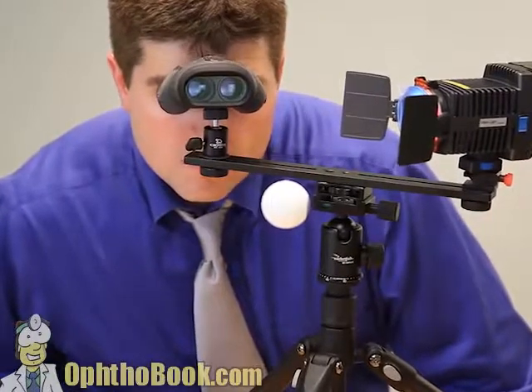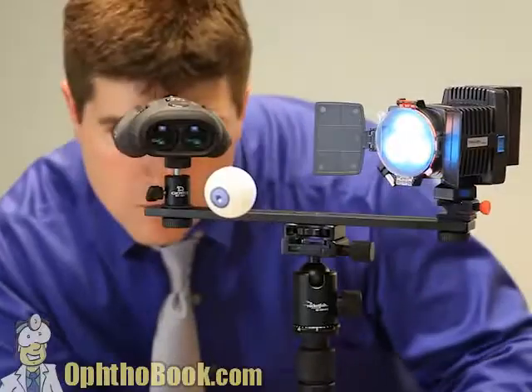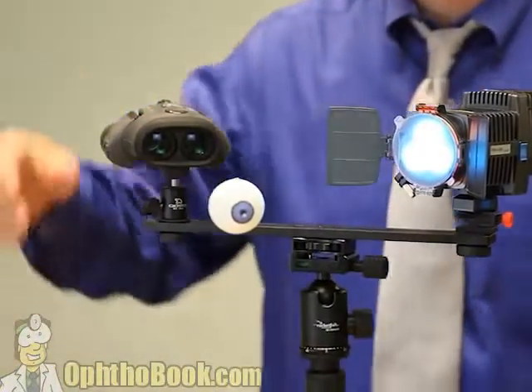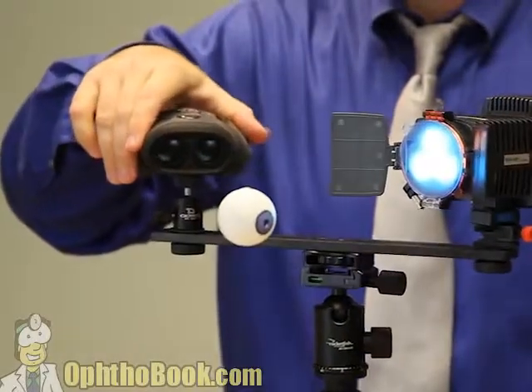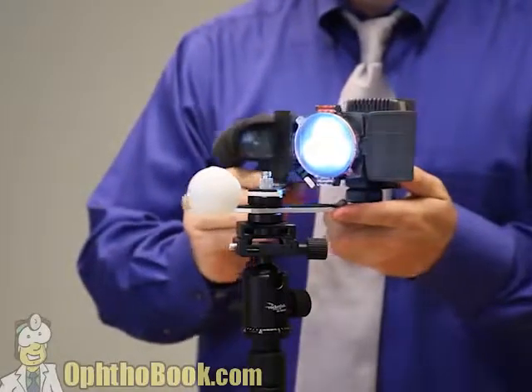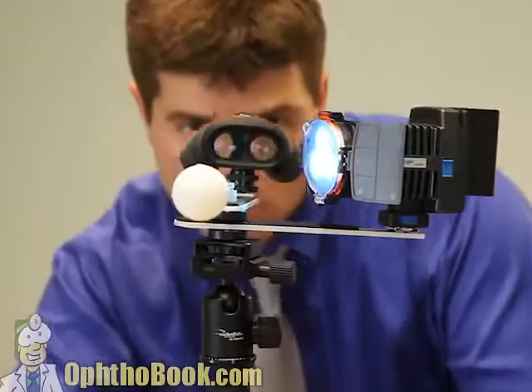We can probably improve our design a little bit more by adding some type of wheels to the bottom of our tripod, so now it moves around and we can really move in and focus in on our eye. Our only last thing is that right now our light is stuck — it can't move in relationship to our microscope. But what if we created some type of hinge mechanism so we could move the light in relation to our scope and they still be in focus at the same point? This is basically the perfect modern microscope.